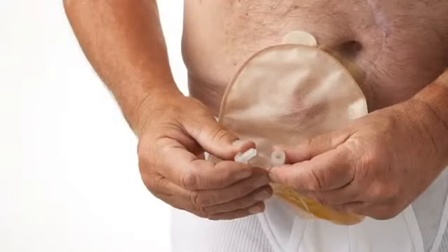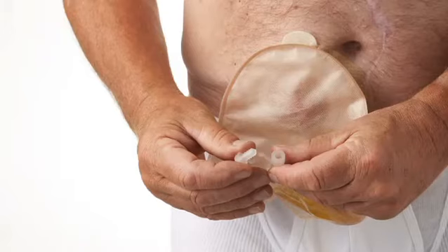Let's have a look at how to empty your urostomy bag in an appropriate way. Decide for yourself which position is the most convenient for you.